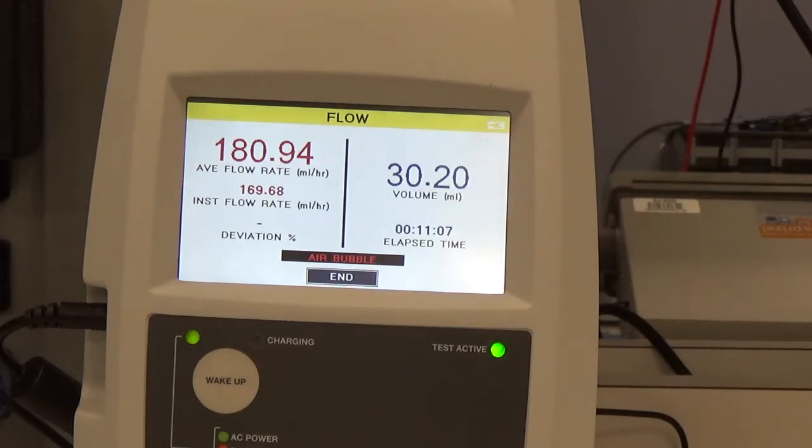And on the left, you can see in the large numbers, we have 180.94 milliliters an hour. Our set rate on the infusion device was 180, so that's looking good.